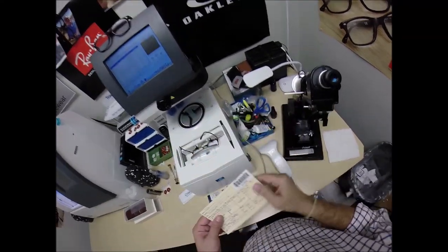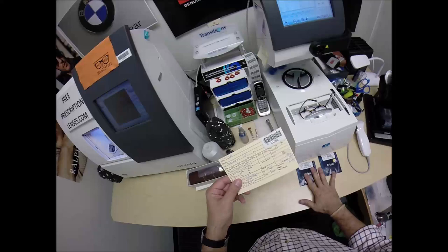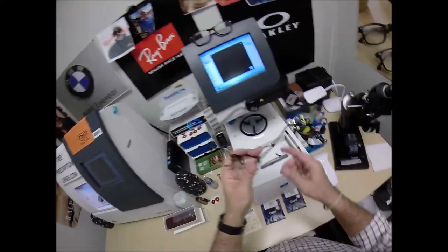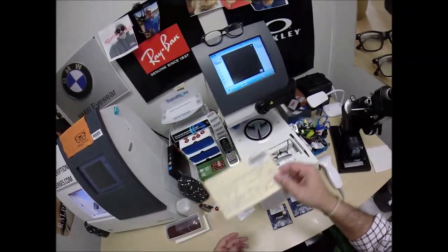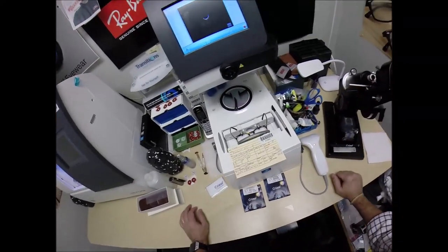You are secret agent 1566. Years from now, if you need new lenses or you want to turn these into sunglasses — because this would be a really nice pair of sunglasses — should you ever need new lenses, I'll have this programmed into my computer. You will not have to mail me this frame again, and I can mail just the lenses to your home. Then you can pop them in yourself.